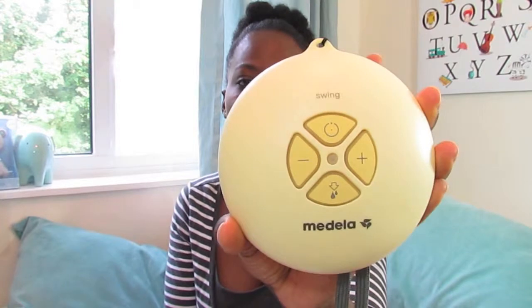The pump I use, which I really like — if you saw my favourites video — is this pump by Medela. It's a Swing pump, and I guess put it this way: if it's not broke, don't fix it. I've never really tried another pump. I even have the manual Medela and I've just not opened it because this worked so well for me.